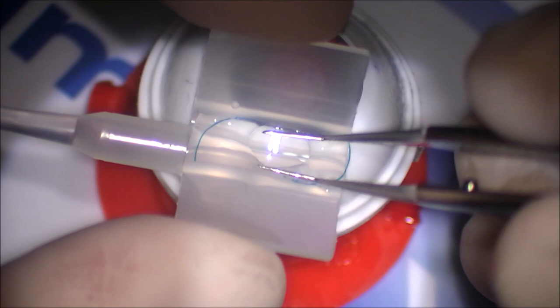The leading haptic has to come out pointed out towards the barrel. It can't crimp inward. And the trailing haptic has to come out of the cartridge. And when you push this plunger, you want to make sure that the haptic doesn't engage the plunger.